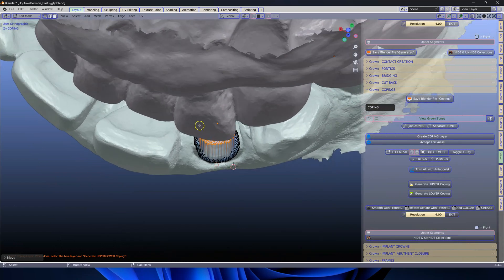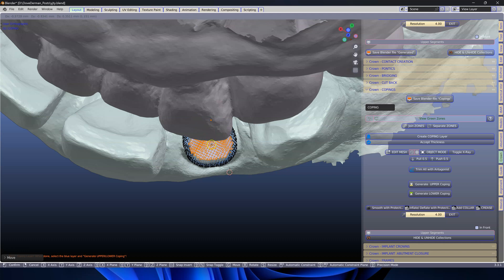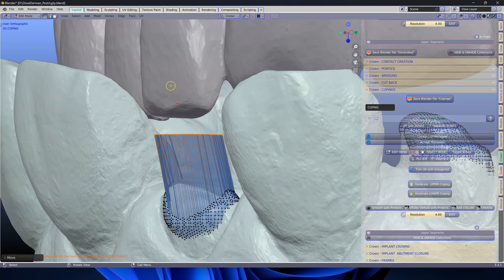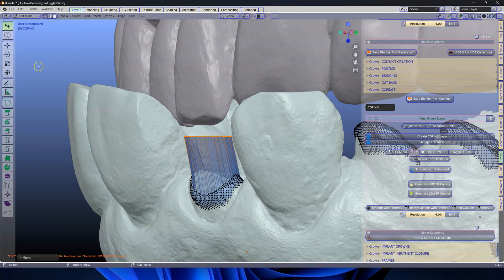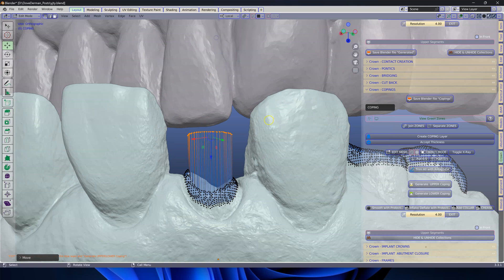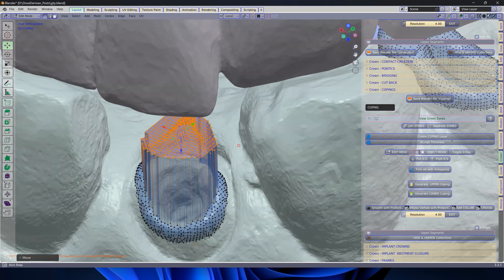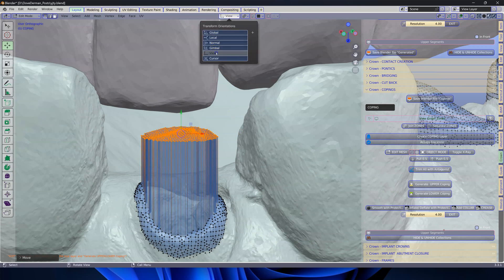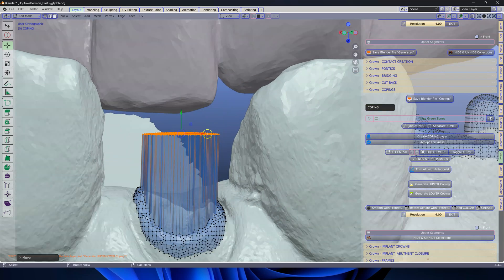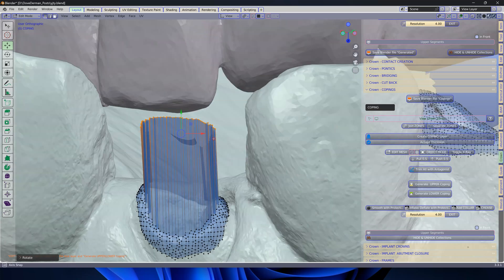Now I've got to decide where I'm going to place this. I'm going to go G to grab and I'm looking at it from the top view. I'm going to use T and see where my widget is. The transform widgets in the local direction are no good. But if I put this into the view, then I can manipulate it — because according to my view, this is the red arrow. So if I go R, X, X, we can rotate it up like this. It's very easy to do once you understand how it's done.